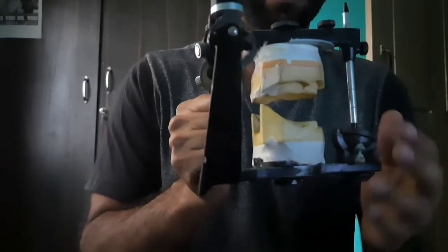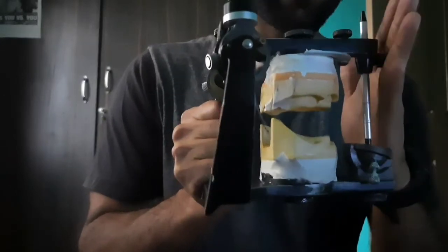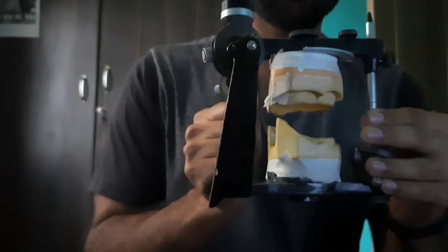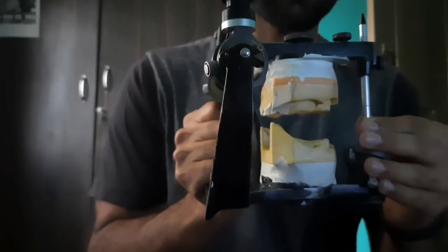This is semi-adjustable because only a portion of the condyle is going to be adjusted.